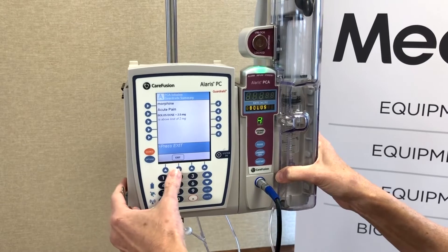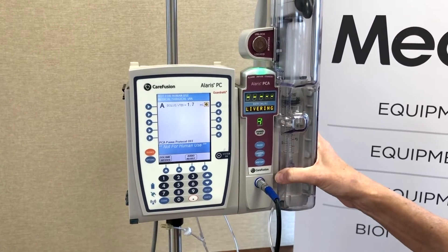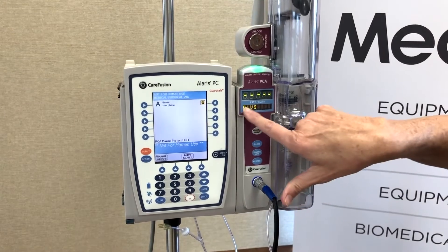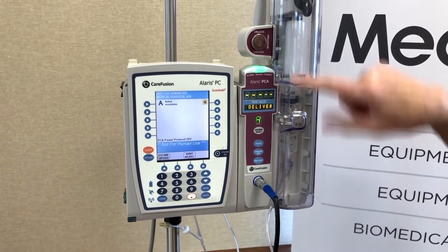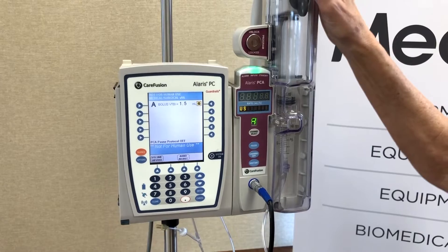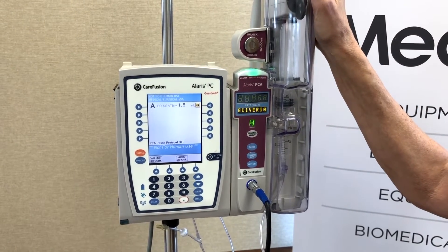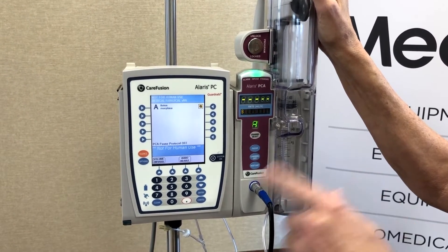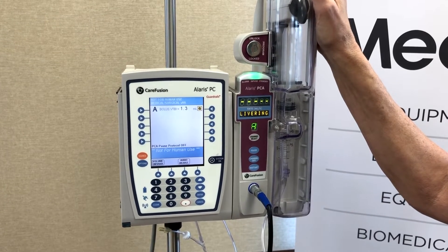You can see we're delivering the bolus dose — it's scrolling across the display saying it's a bolus dose, and the green light is infusing, meaning the dose is going. Once the dose is complete, it will automatically flip back to the base rate of one milligram.